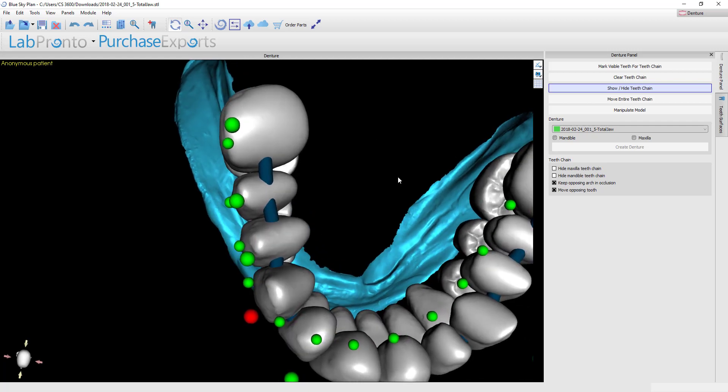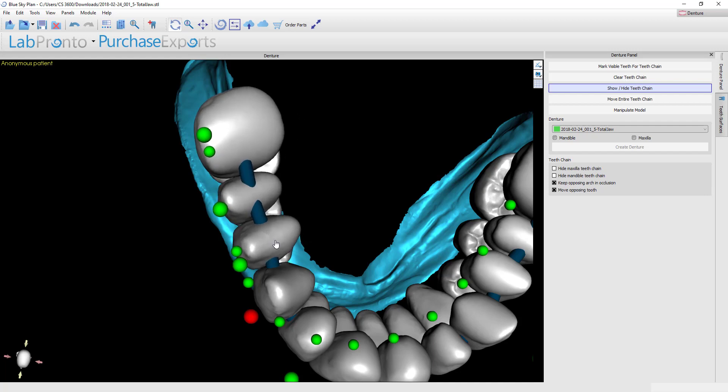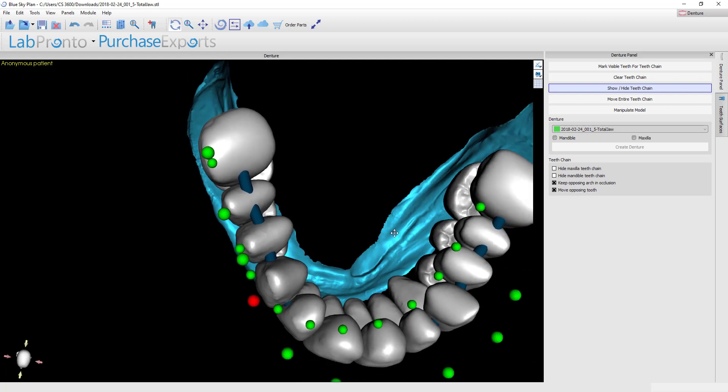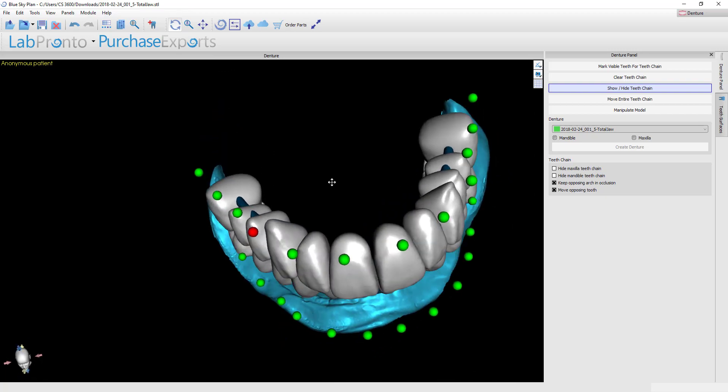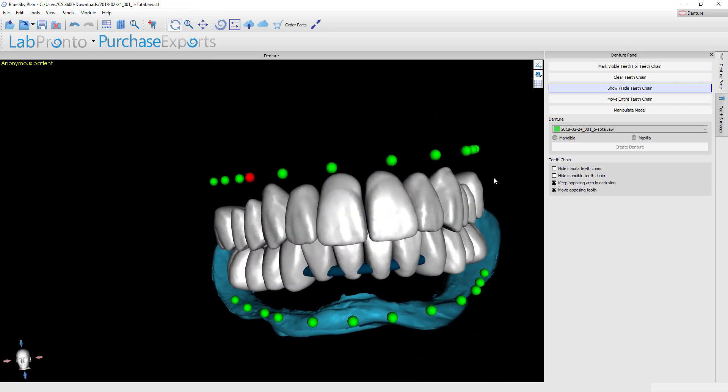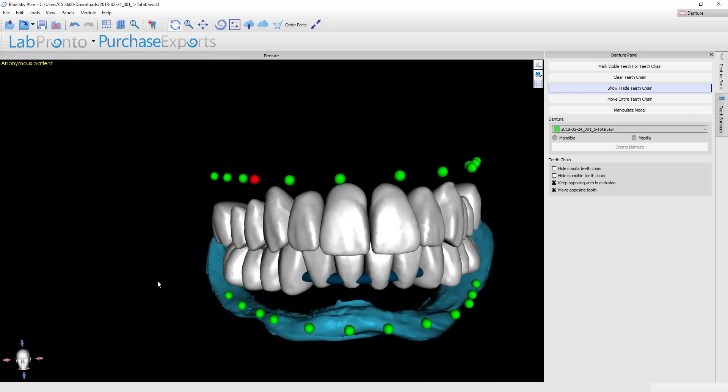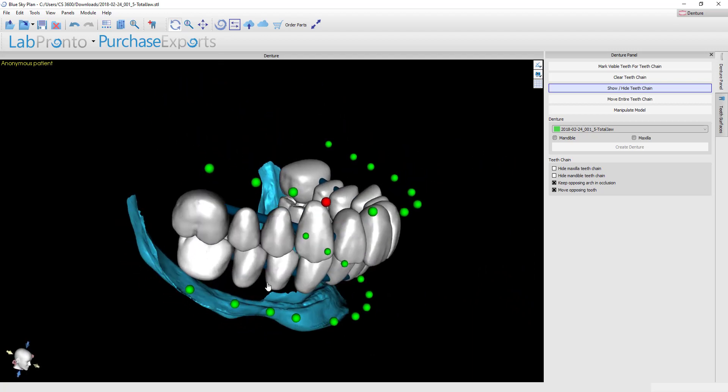So the way you do this is you hold down the shift button and then let's grab the maxillary tooth just distal to the one that we locked and holding the shift button I'm going to left click and then holding that left mouse button down I'm going to make the movement that I need to swing those teeth over the top of the ridge. So in one quick and easy movement we've now finished our setup and everything is in the proper position to proceed with making the bases.